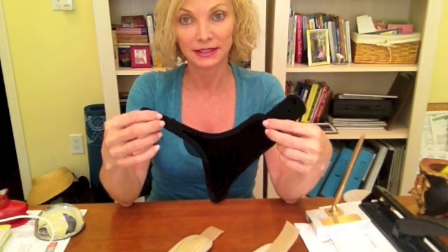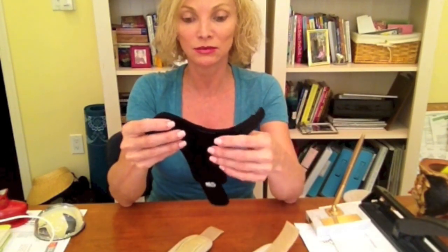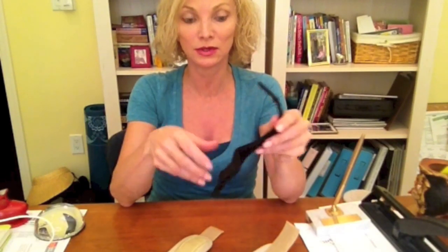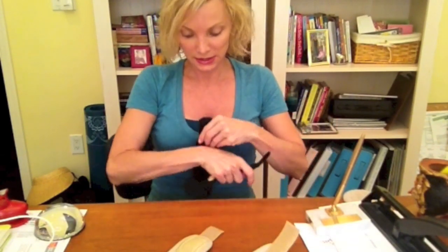The first one came from my doctor. It was covered by my insurance because of that, and he patented it. There's a lot of Velcro on these in two places, so you can attach it fairly easily. You cannot machine wash it — it's only hand washable because the Velcro gets unsticky very easily. How it goes on is I hold it up to my tummy, wrap it around my wrist, and then there's another part that wraps around your thumb. What's really cool is it keeps your thumb in a good position so it doesn't hurt as much.